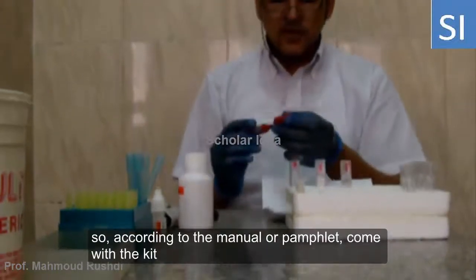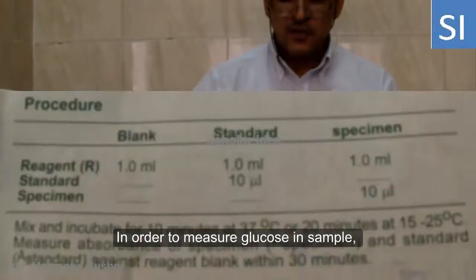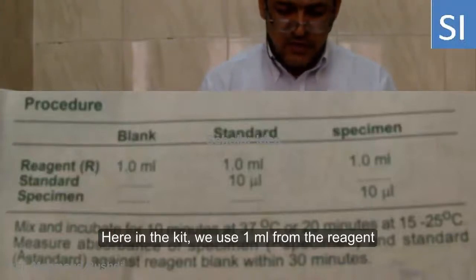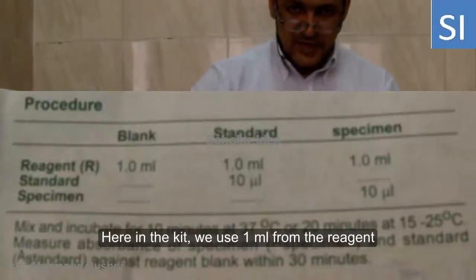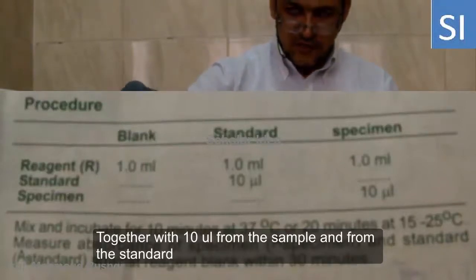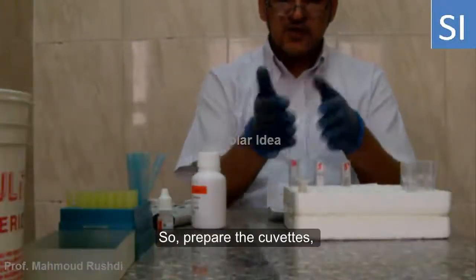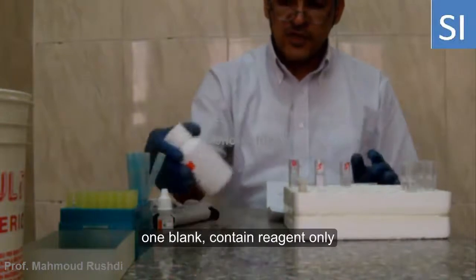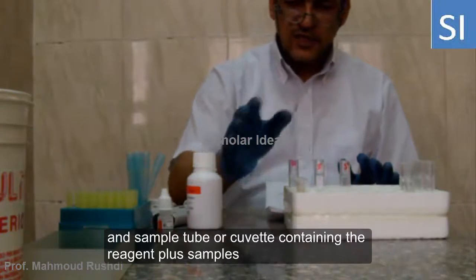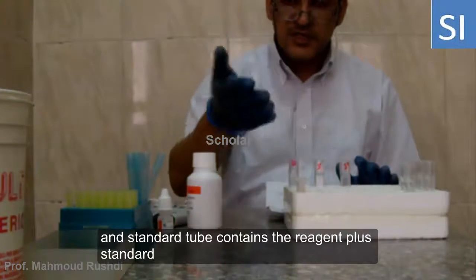According to the kit instructions, in order to measure glucose in the sample, we use 1 milliliter from the reagent together with 10 microliters from the sample. So we prepare three cuvettes: one blank containing the reagent only, one tube containing the reagent plus sample, and one standard tube containing the reagent plus standard solution.